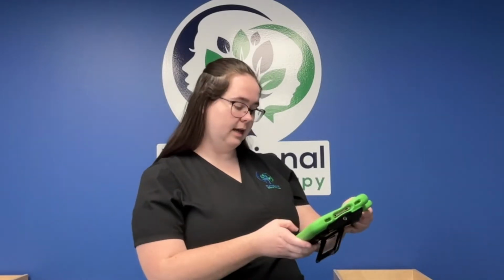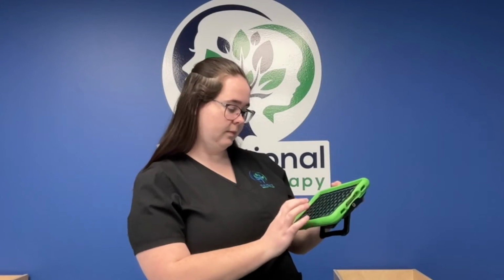Once you're more familiar with the device, a good rule of thumb is to model equal to or one more than what your child is already doing. So if your child is selecting one icon spontaneously, model 2 words. Now if your child is starting to string 3 words together, it may be time to model the same phrases using correct grammar, like going to the store.